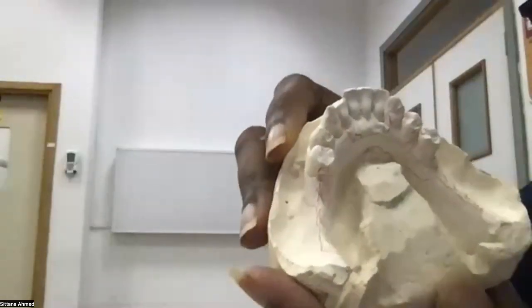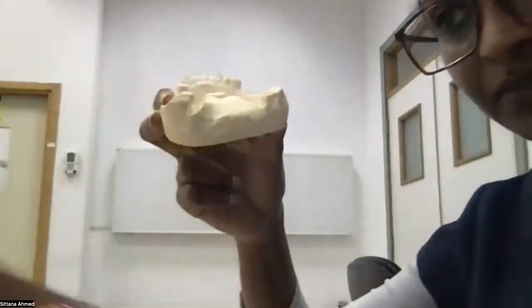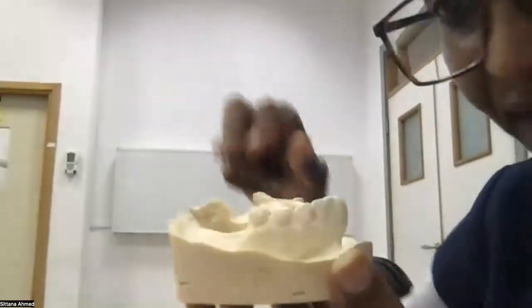Once I am done with my design, we will put it on the surveyor. So let's put it on the surveyor. Before I put it on the surveyor, let's do all the designing for all the casts, and you will get the hint of designing. Then we can put one or two for surveying. Let's keep going.